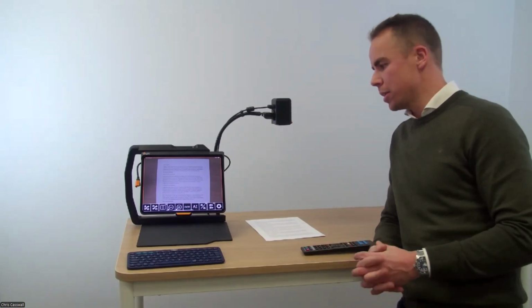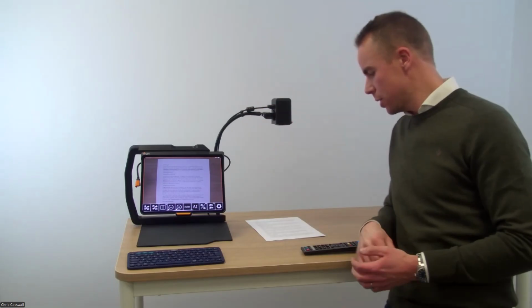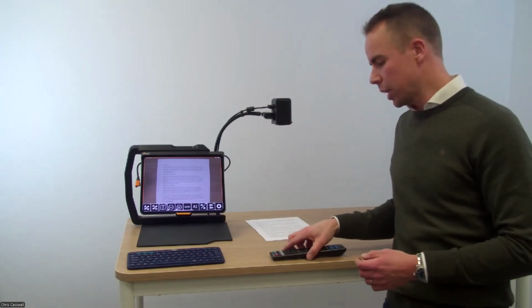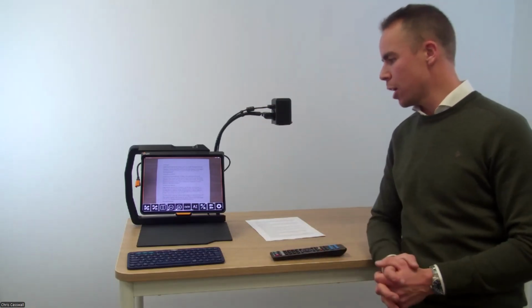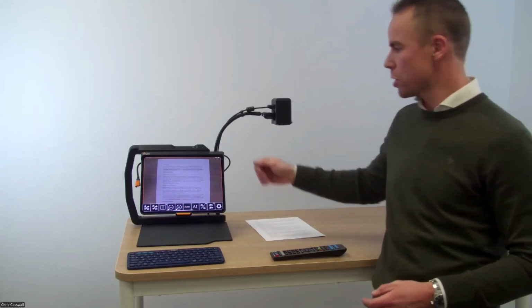The only difference within the software is if I have the MagniLink Air Go product, the software recognizes that, and it's adding the preset position features and the controlling features up, down, left, and right, since the camera is motorized. But other than that, it's the same for any of those cameras.